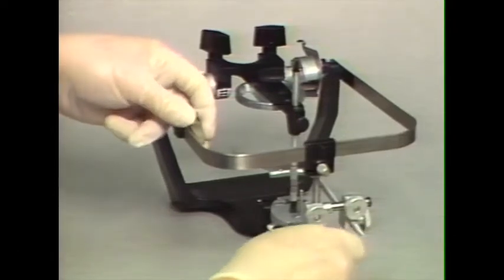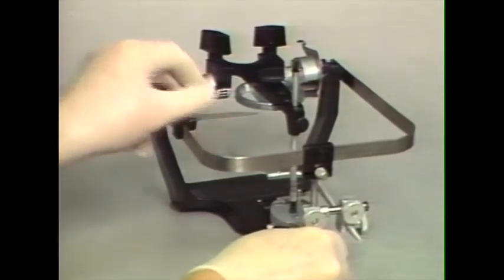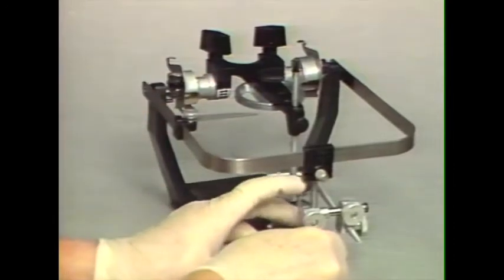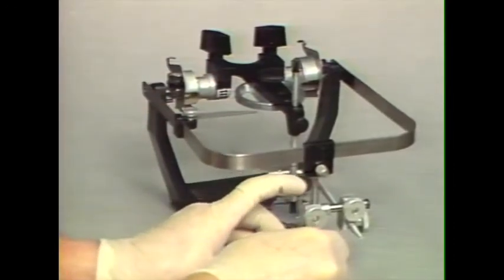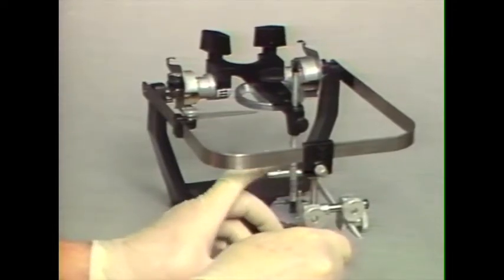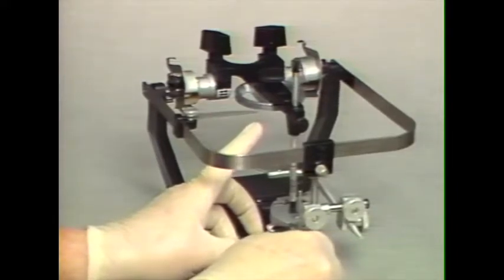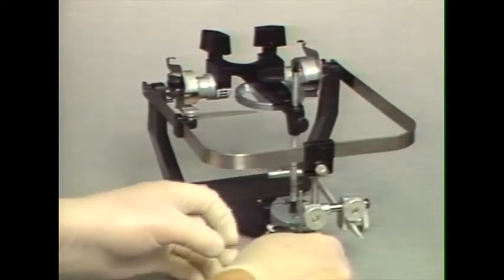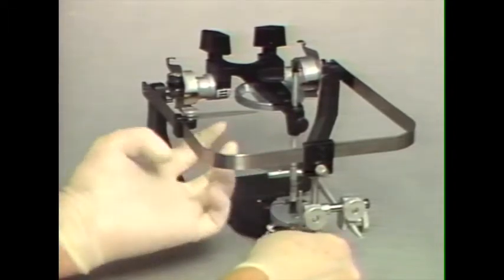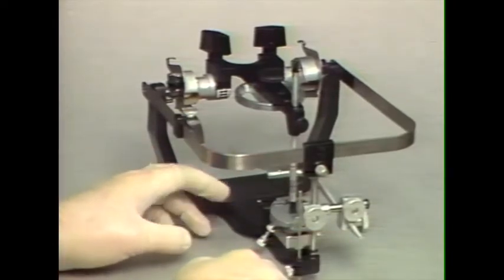We then can use this anterior elevating rod to set the proper vertical level of the face bow record, and that is either to the axis orbital indicator if one is on the articulator here, or to the lower level of the maxillary mounting ring. We then would be ready to use plaster to attach the maxillary cast after we place cast support in the lower members so that the face bow does not sag.